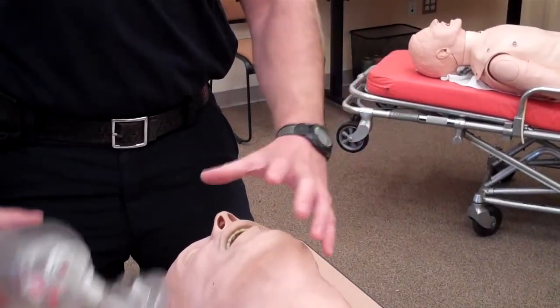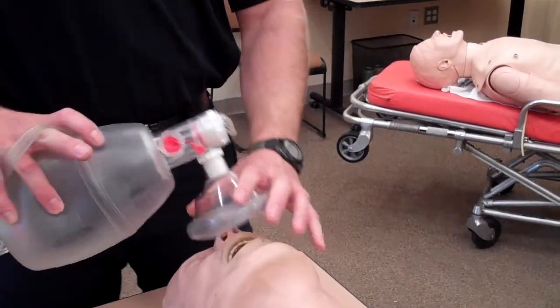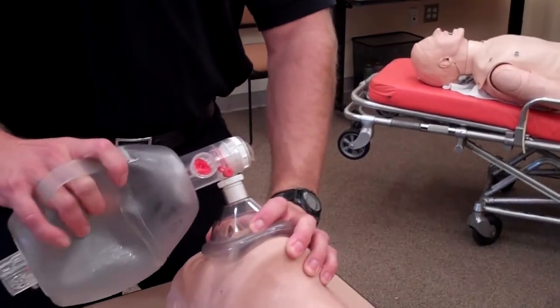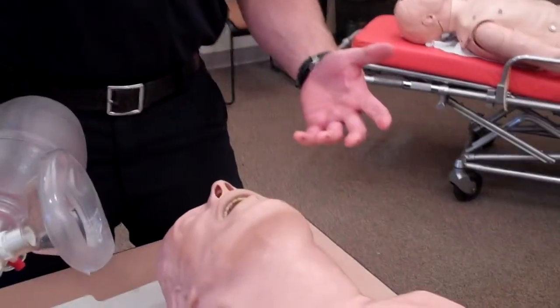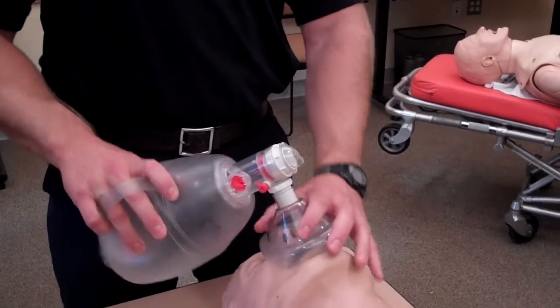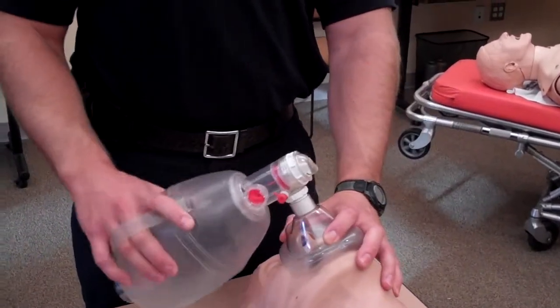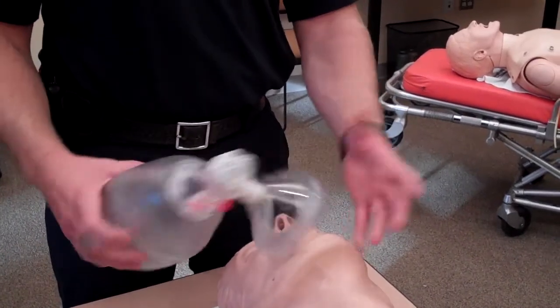In order to keep pressure, you're cramping your hand, trying to make a motion to maintain a seal which has you bringing your thumb and your pinky together. This works in the classroom when you're only giving a couple of ventilations at a time, but with prolonged ventilations on an actual patient, your forearm and hand are going to get cramped and you're going to have problems keeping a seal because your hand is going to get tired.